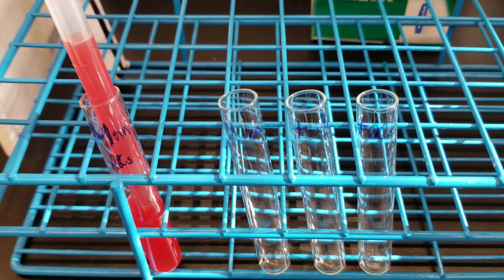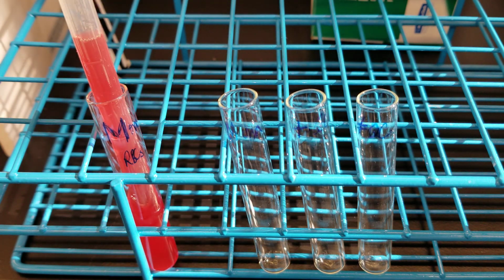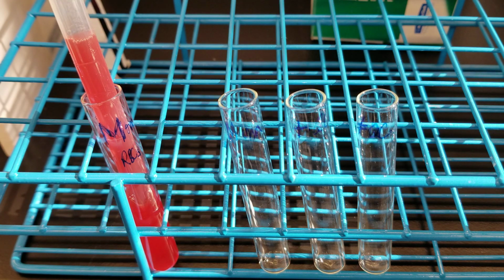Okay, and so the indicator cells are basically a weak suspension of donor cells that contain the D antigen, and we're going to do the positive and negative control treated the same way as the patient. So that means we'll add the modified anti-D to the positive and negative control, and then we'll wash them just like we will be doing with the patient cells, and then we'll add those indicator cells as well. Okay, so that's the main gist of what we're doing.